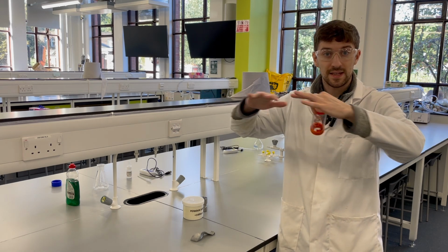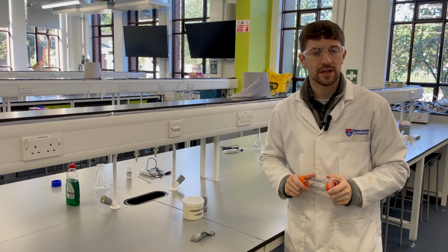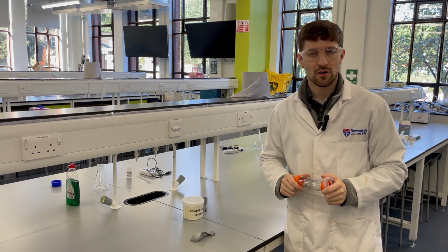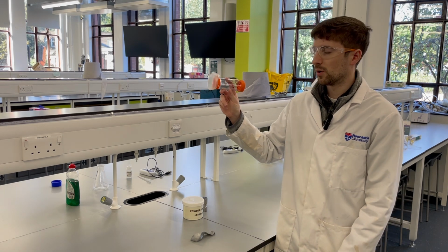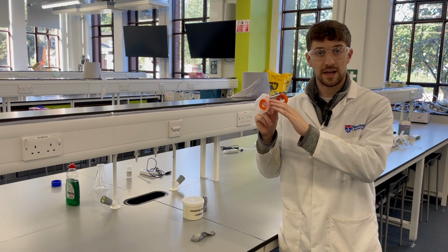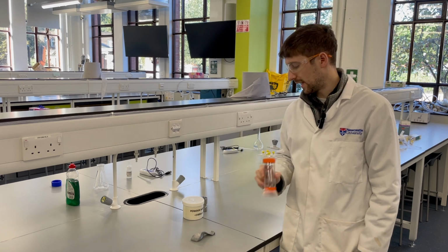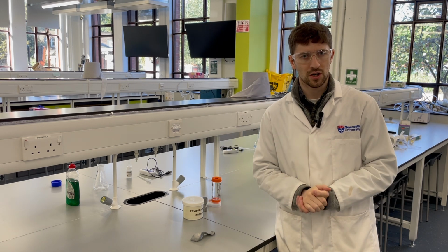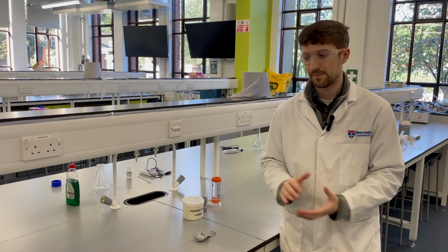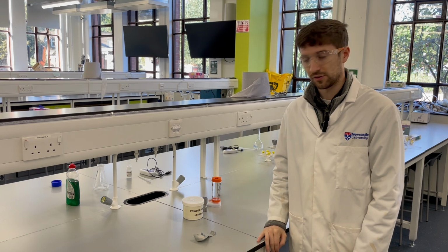That's one phase, if you like, at which the surfactant forms a monolayer on the surface of the sea or of water. And in this case, we're hoping that our surfactant will create a thin layer on the surface of the plastic of this inhaler, and that's going to stop that charge buildup for a short time, okay, to again maximize drug delivery to the lung.